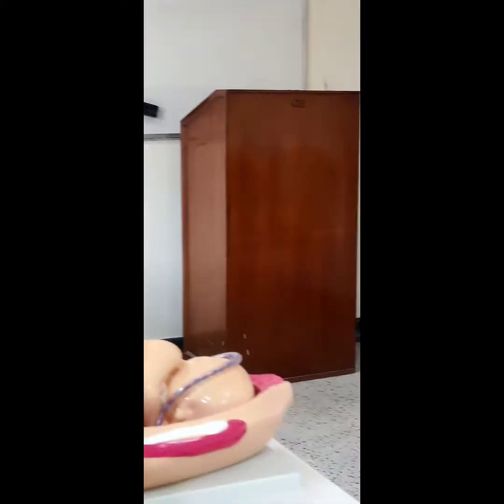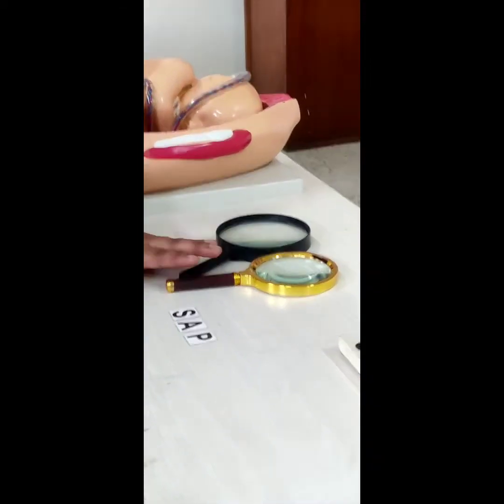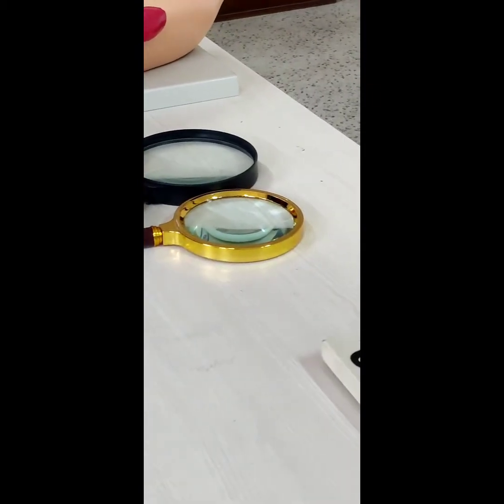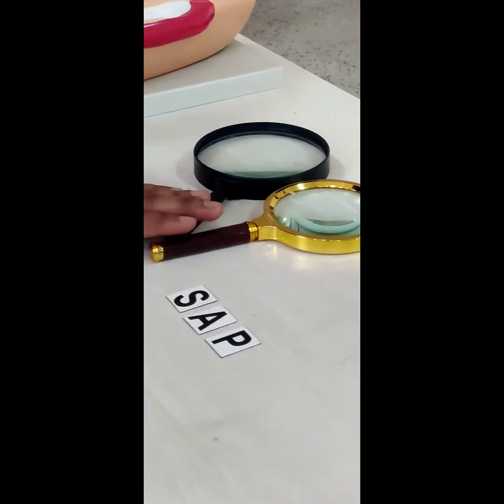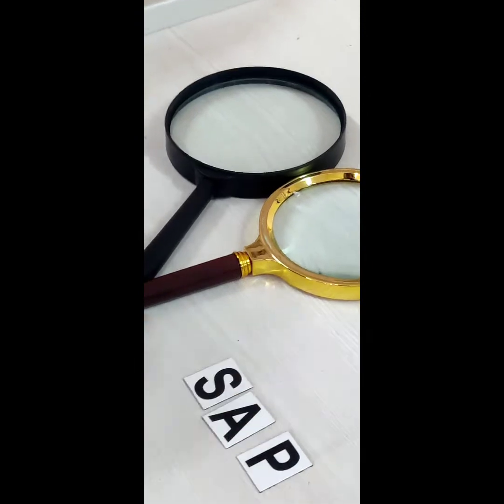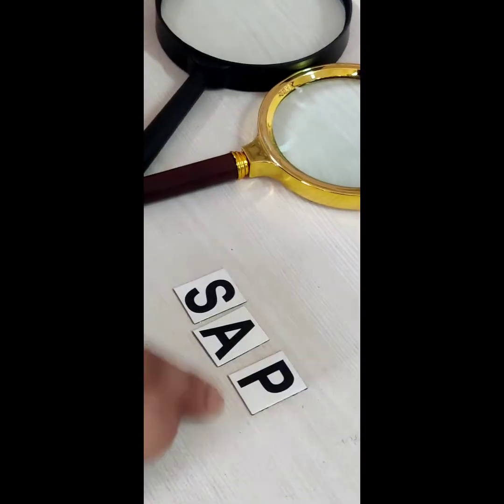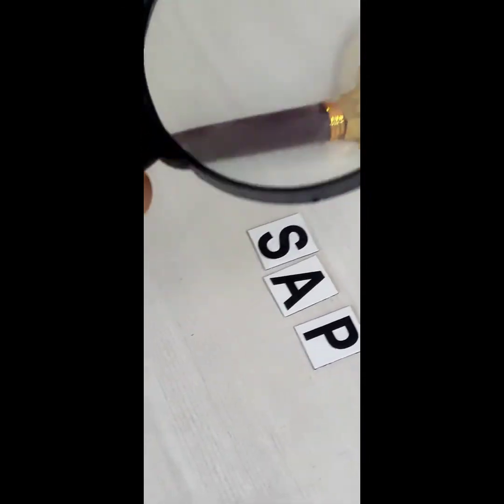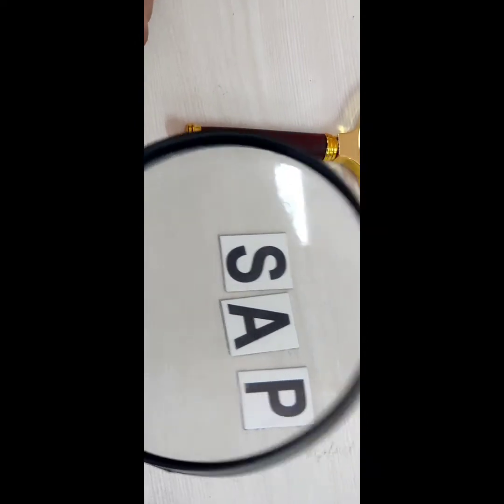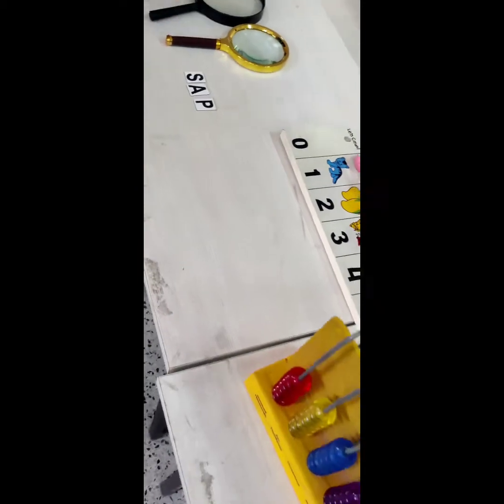Now let me take you through the second device. These are the magnifiers, a device which plays a great role when handled by a child with low vision. It enlarges the text or the picture for better visibility, as you can see here. Come, let me show you. See, these are the three letters of the alphabet here. You can see them like this, but if I use this magnifier — look, see the difference here. How enlarged they are. Great.